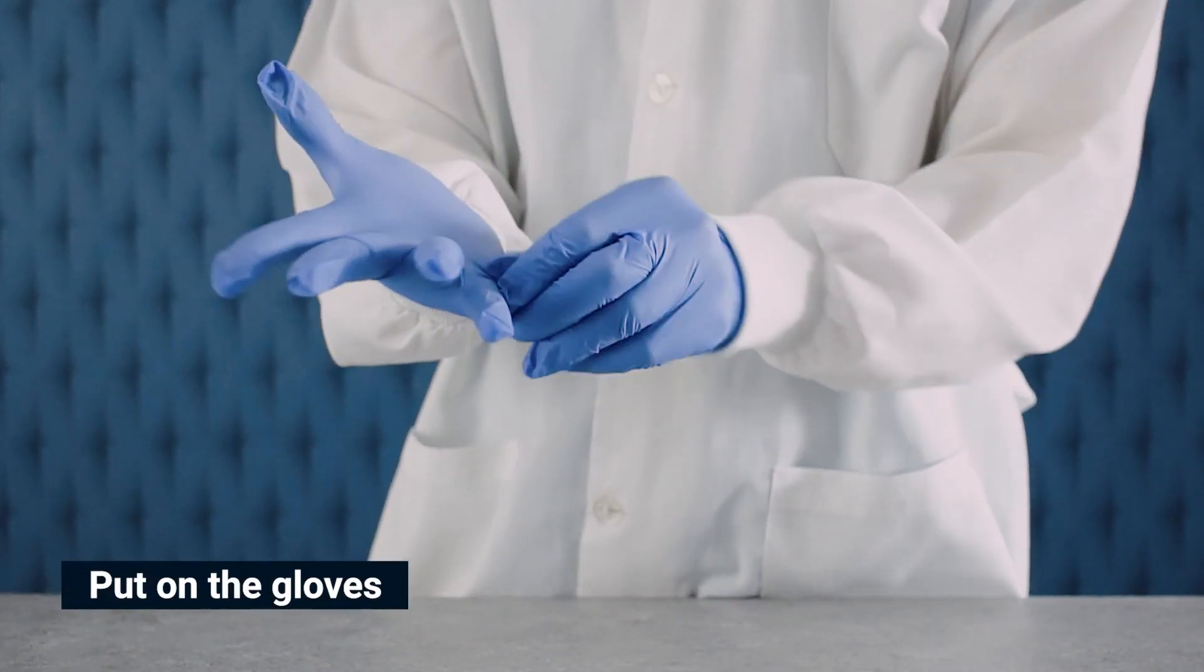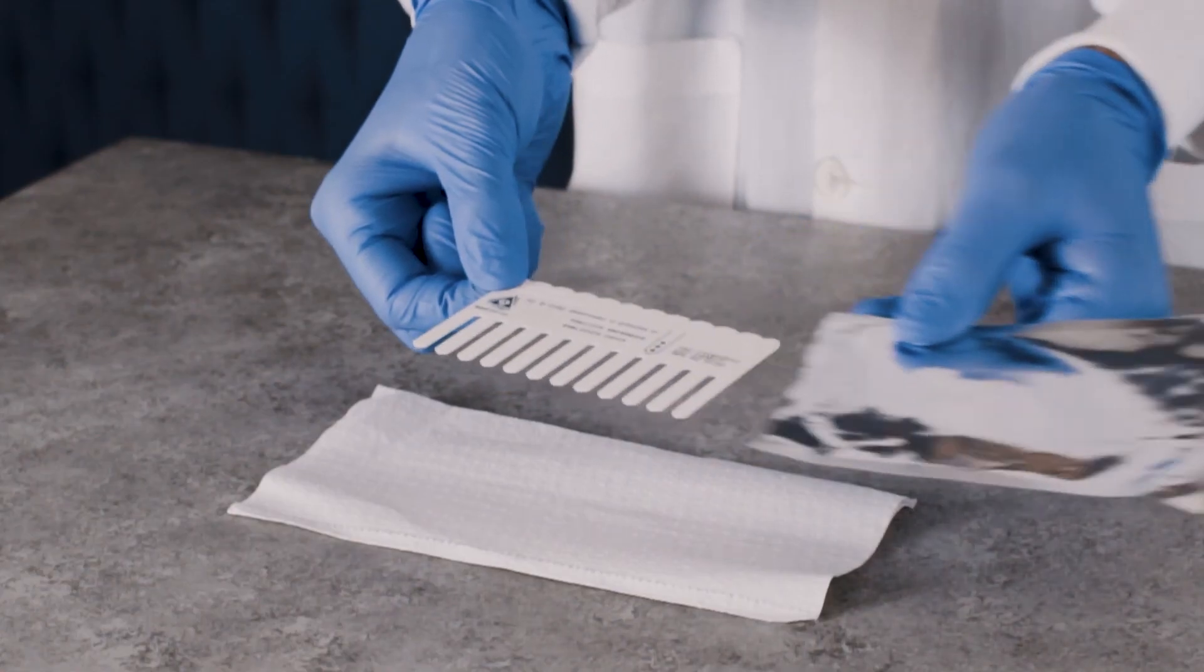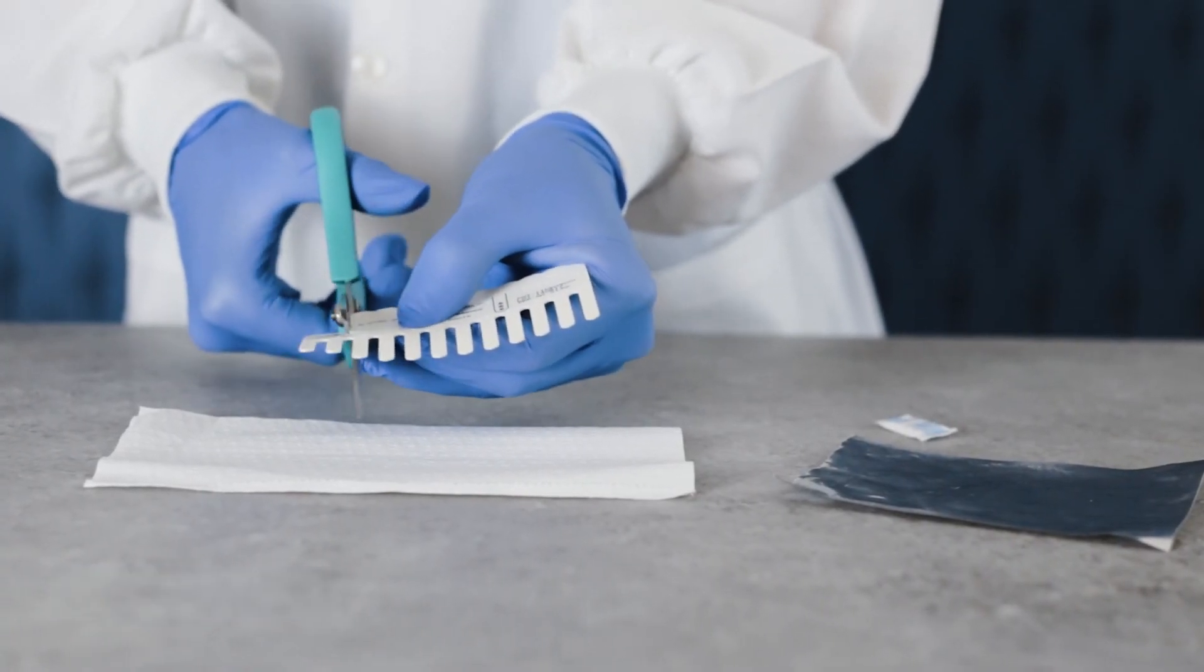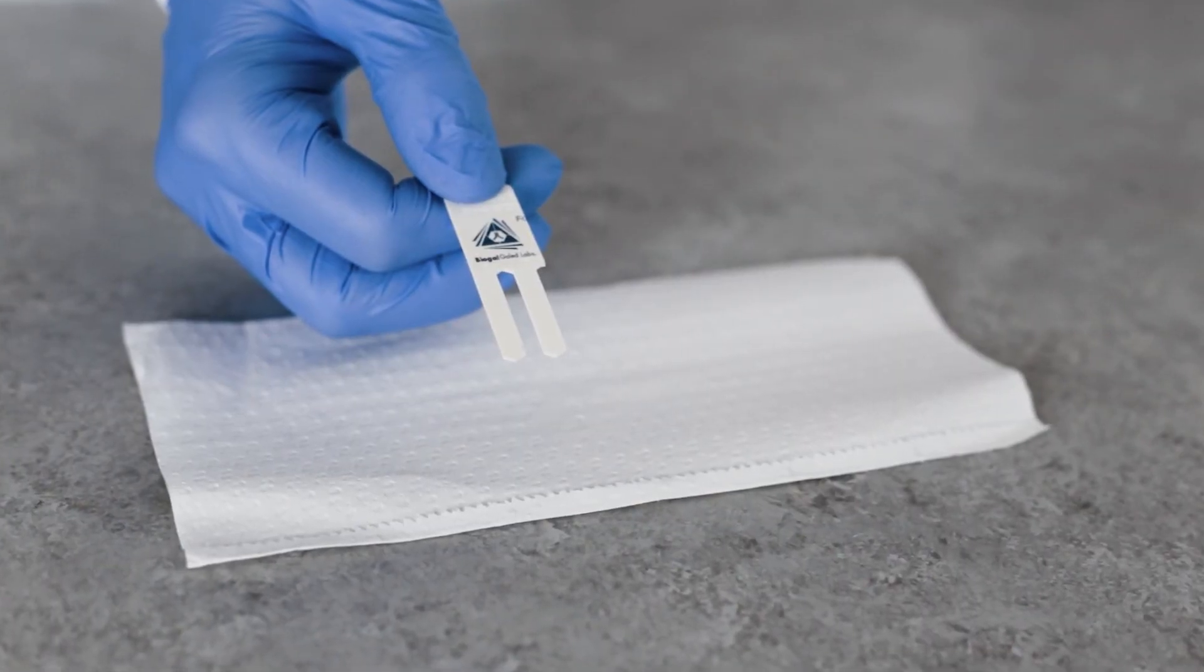Before starting the test, put on gloves. Individual or multiple tests are processed by breaking off the desired number of teeth from the comb. Here, we will perform the test with two teeth.